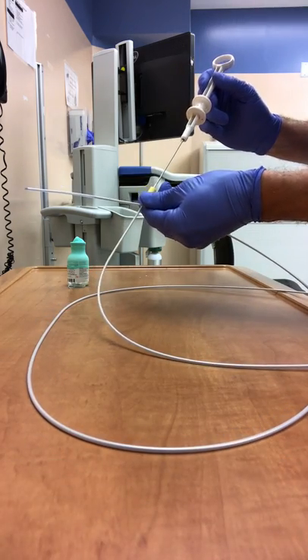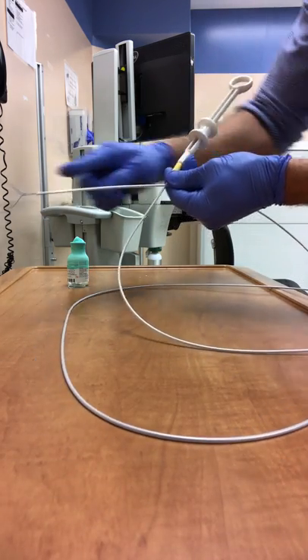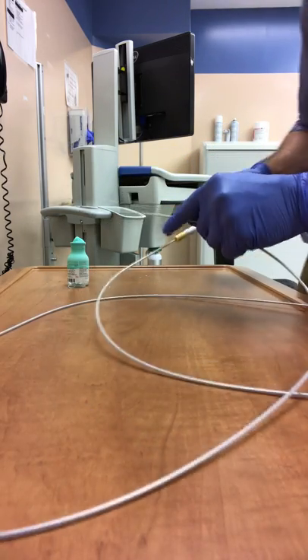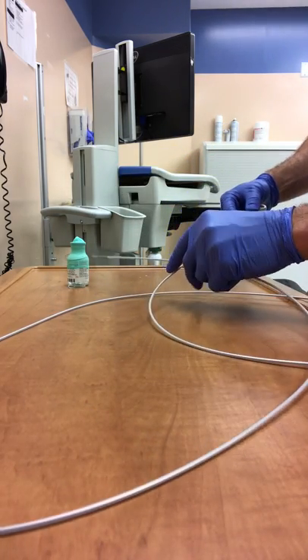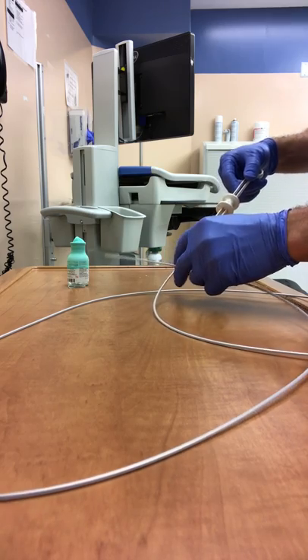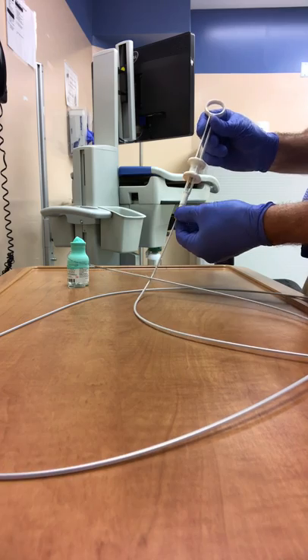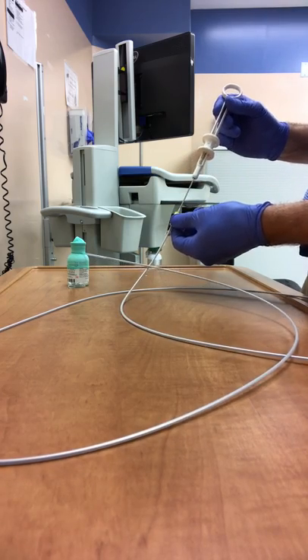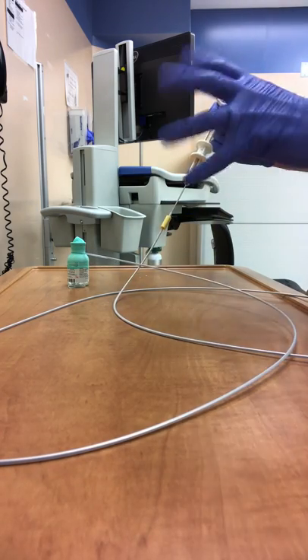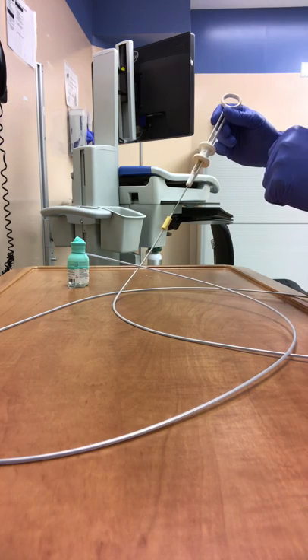Then you can push the handle back towards the yellow tab in order to reveal the loop once it's out in the endoscopic view. The physician will then place the loop around the stalk of the polyp, and as a nurse you can assist by pulling the handle away from the yellow tab to tighten and hold your position around the stalk of the polyp.